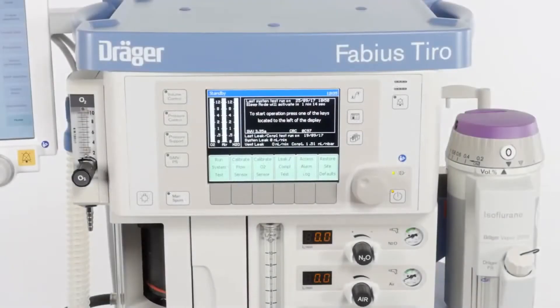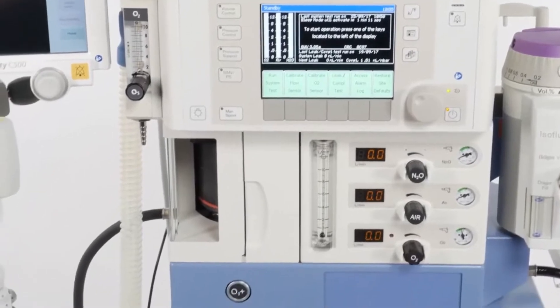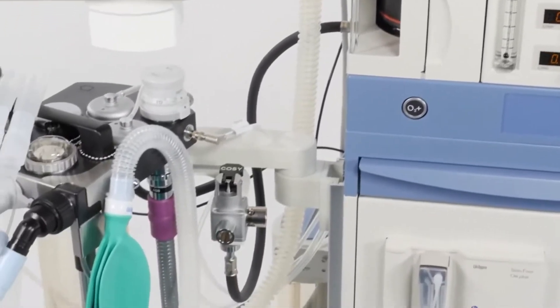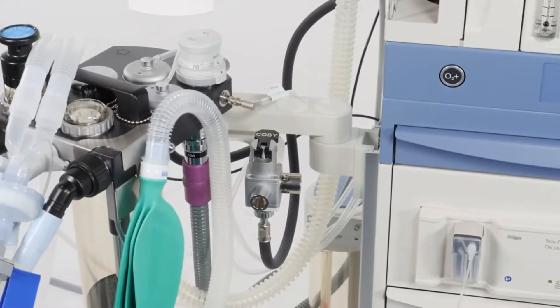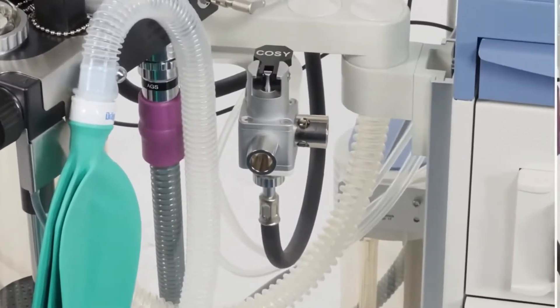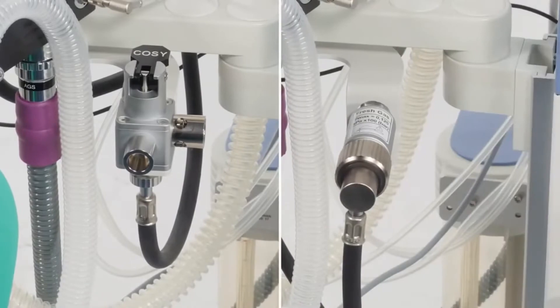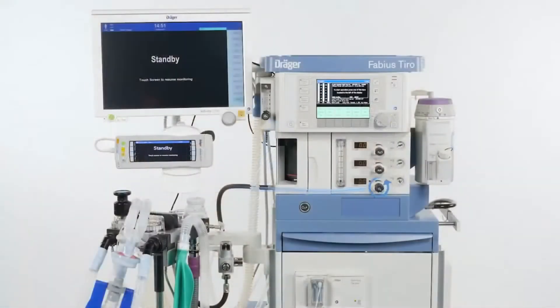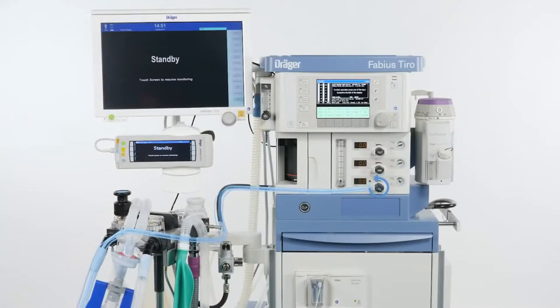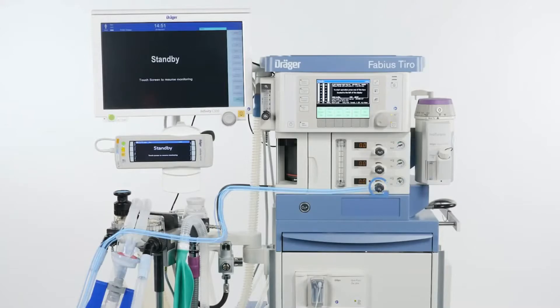Drager Fabius anesthesia devices can be equipped with an optional external fresh gas outlet, or Auxiliary Common Gas Outlet, ACGO for short. The ACGO is available in two different variants: with and without mechanical switch. The ACGO enables you to divert the fresh gas supply from the compact breathing system, also known as COSY, to a non-rebreathing system.